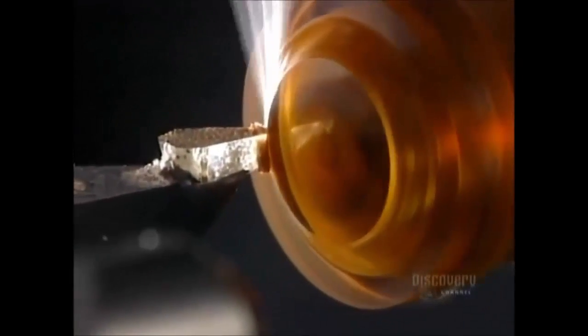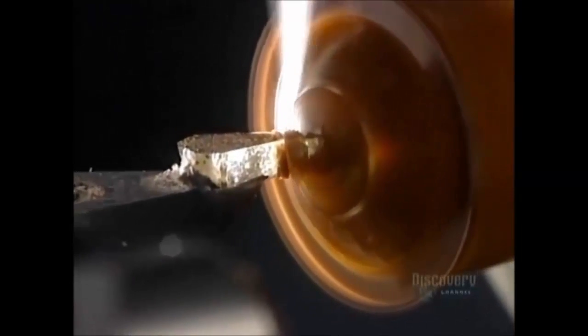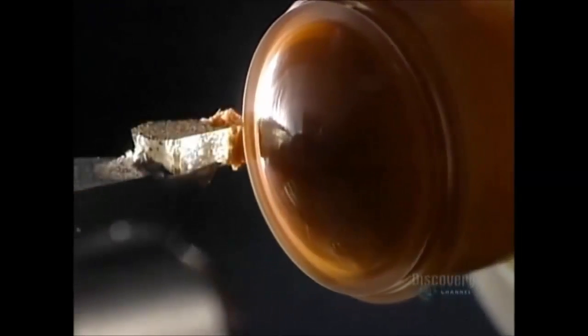The comfort of a lens is also determined by its thickness — it must be as thin as possible while retaining sufficient solidity. They begin by shaping the outer diameter of the lens, which takes only a few seconds.